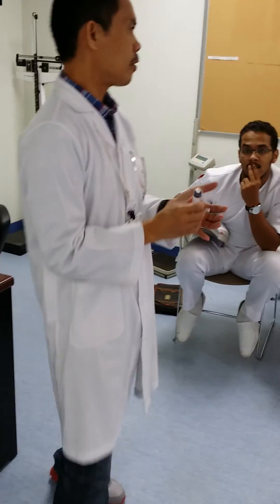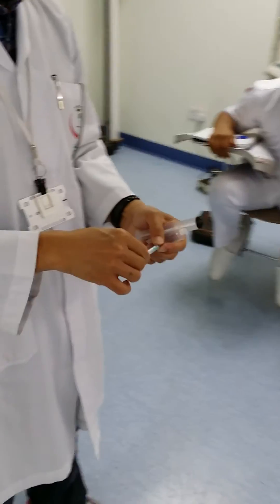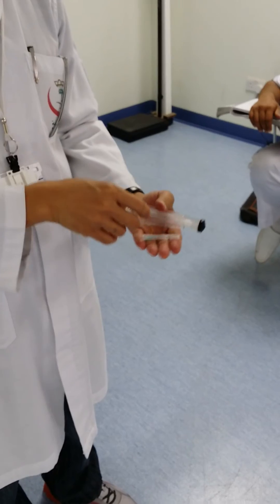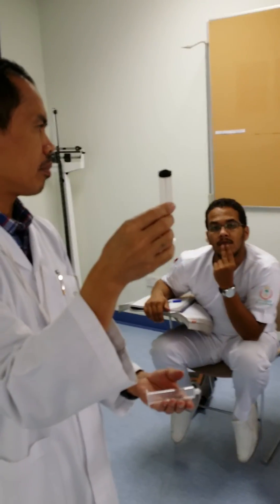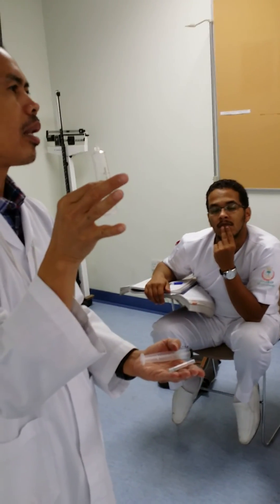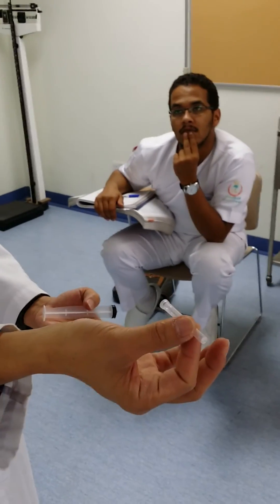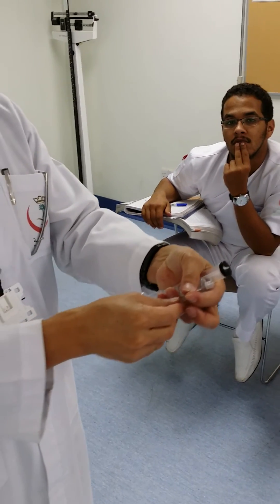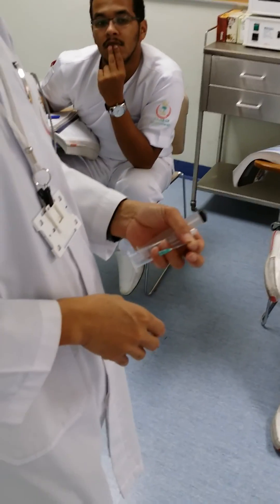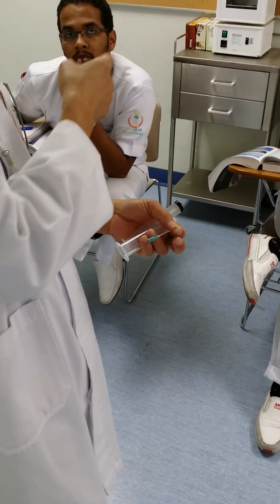I will name the parts of the syringe for you. This one is called the plunger. This one is called the barrel. This is the tip of the syringe. This one is the cover of the syringe. This one is called the needle. This one at the tip of the syringe is called the bevel. I will write it there so that you have it right in your head.